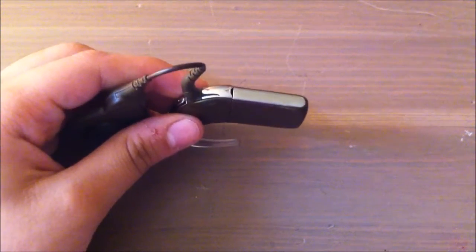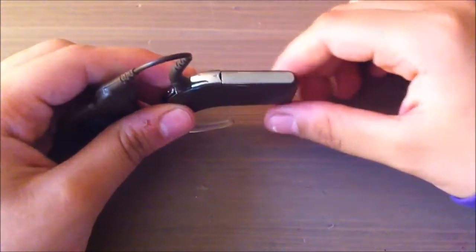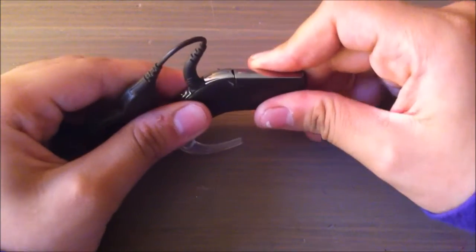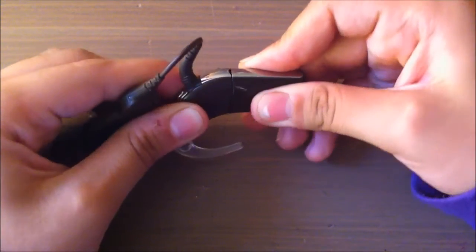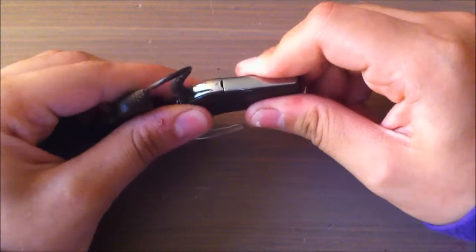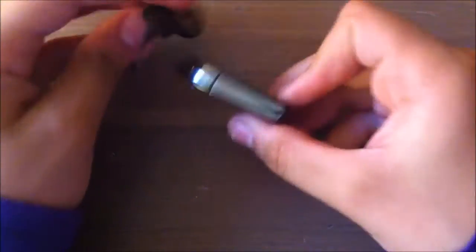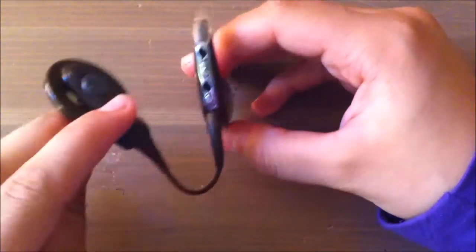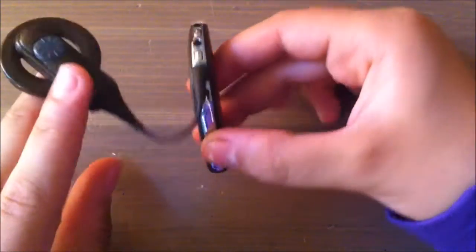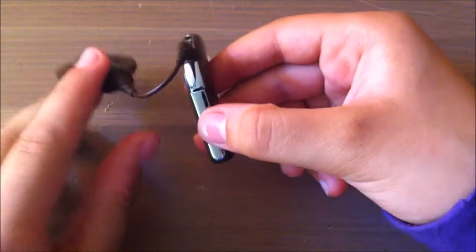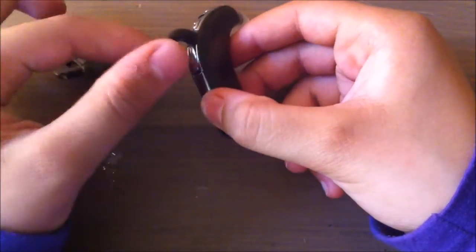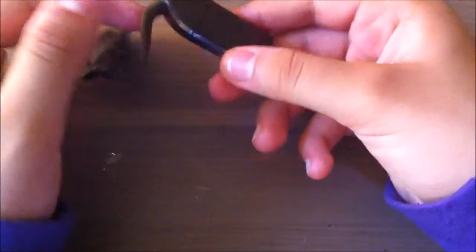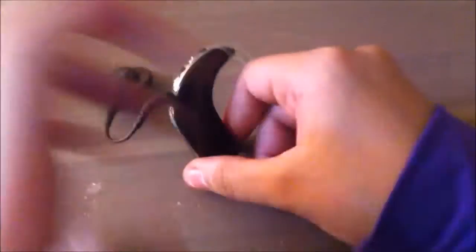Basically, take the battery off by twisting it. If you're holding the processor like this, you're going to twist it to the left. I'm just going to turn around because it's kind of easier for me to do it this way.